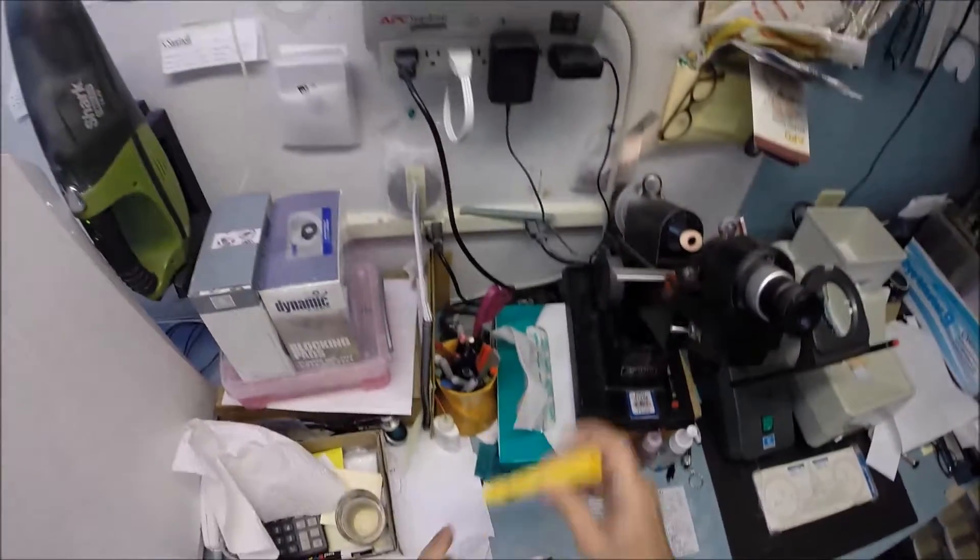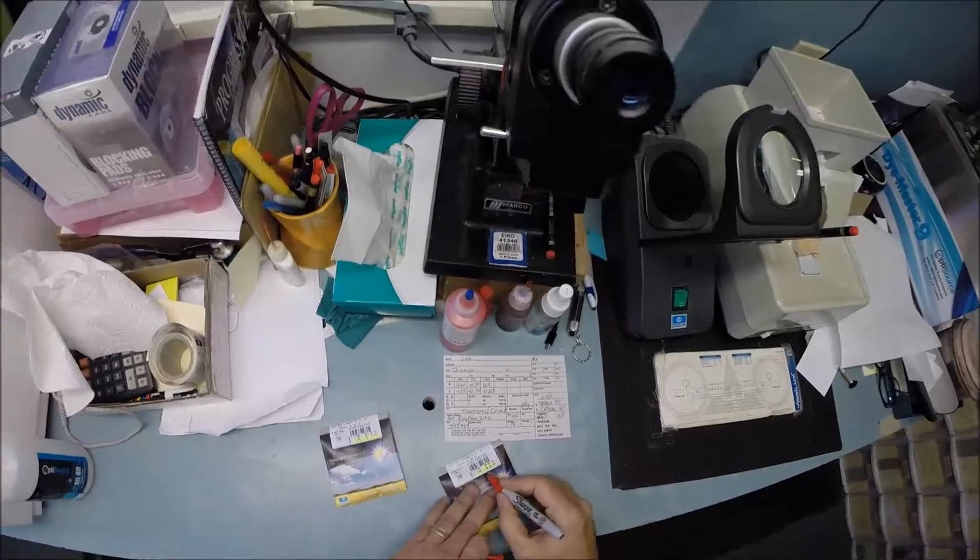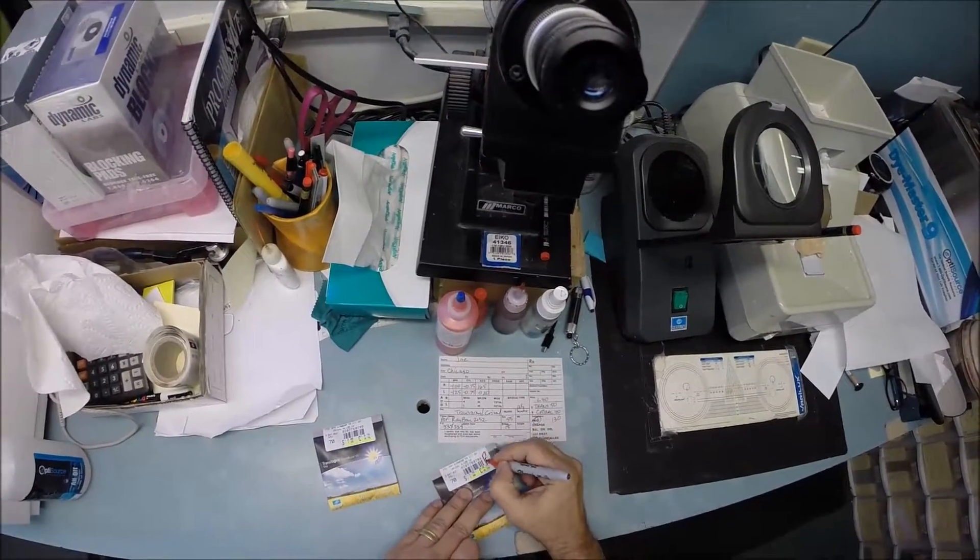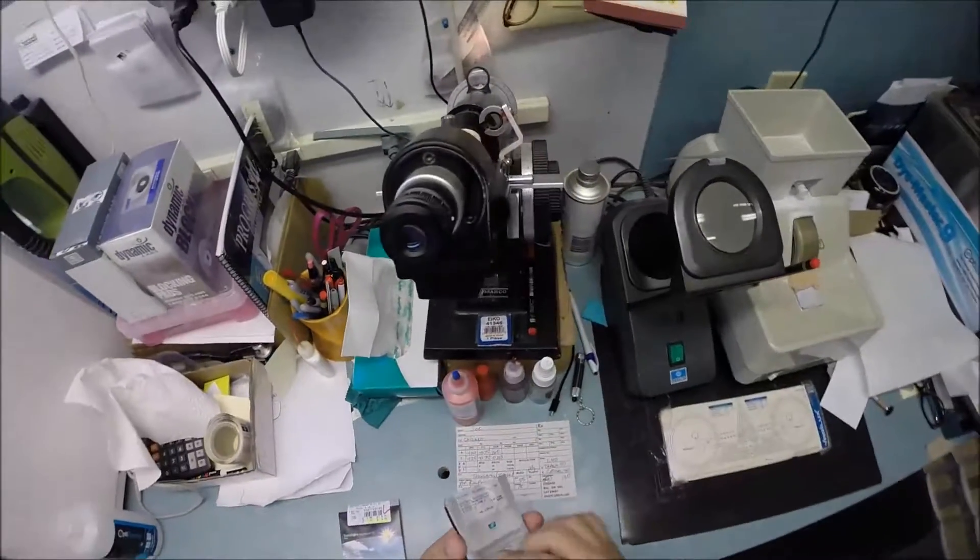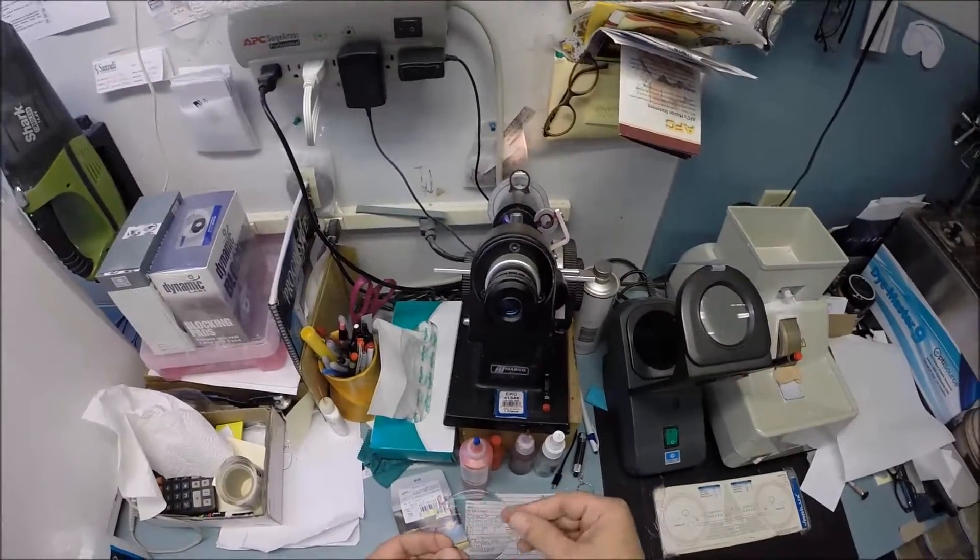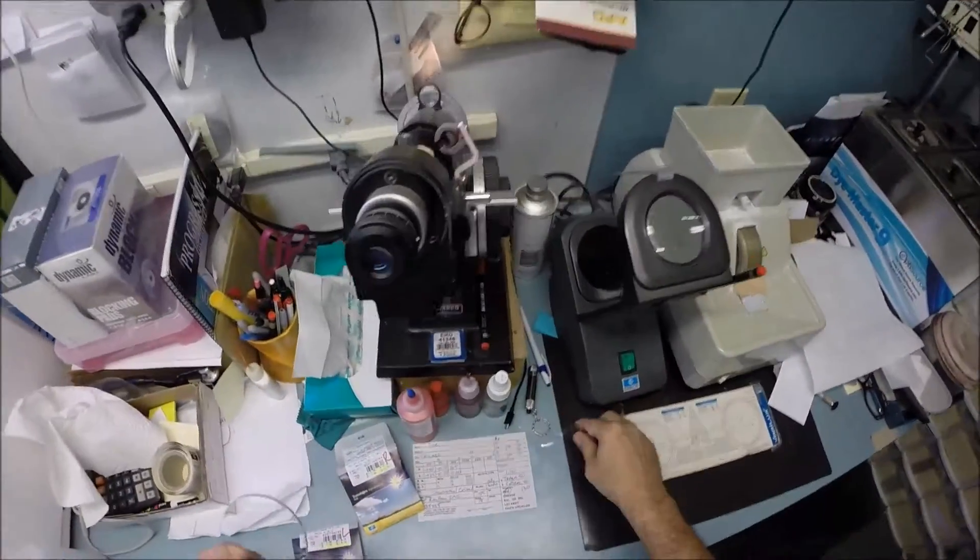Let me mark your lenses. You're going to be receiving the original packet so you know these are the authentic brands I'm sending you. This is your right lens minus 1 minus 75, and this is your left.